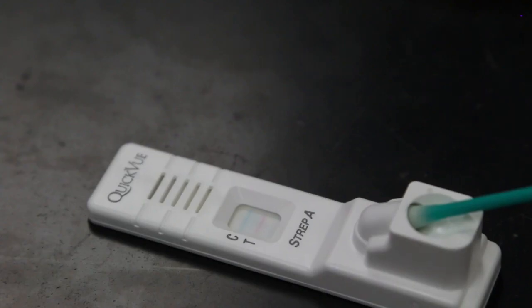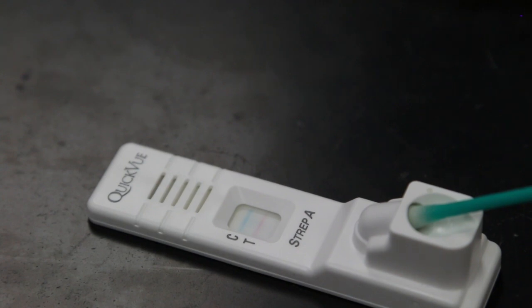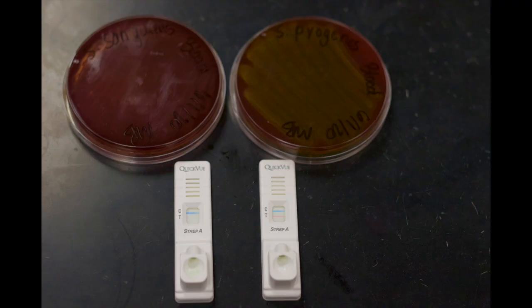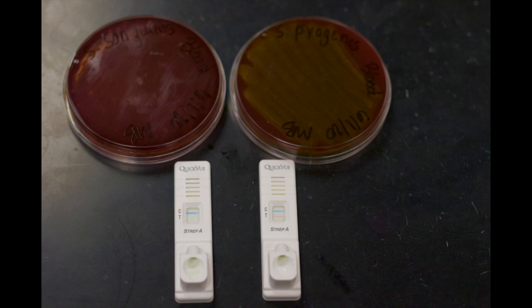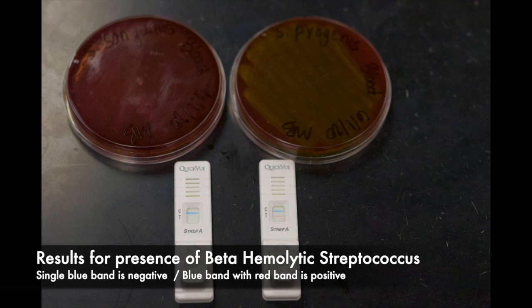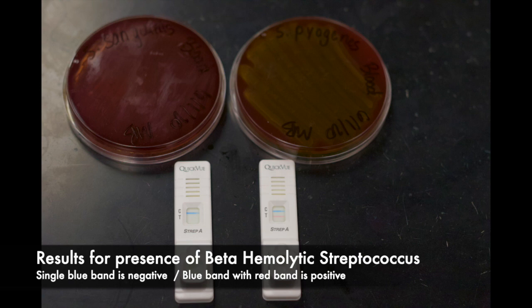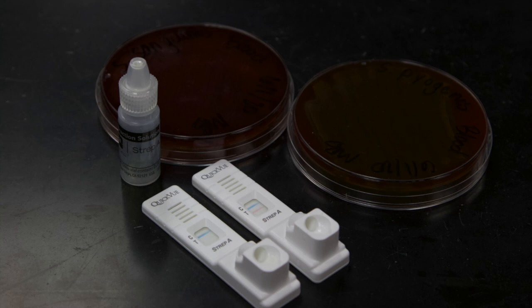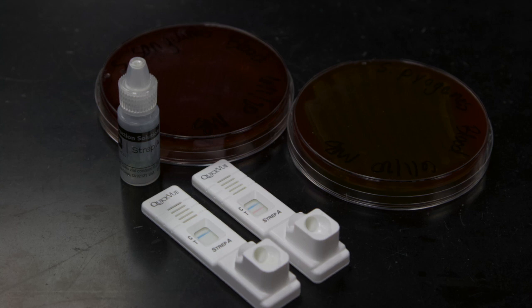You can see here that this is from the positive control and we have a positive test result. When reading the results of a rapid A strep test, a single blue band in the control window indicates a negative result. The presence of a red band next to the T in the window indicates a positive result. So a single blue band is considered negative, and a blue band with a red band is considered positive.